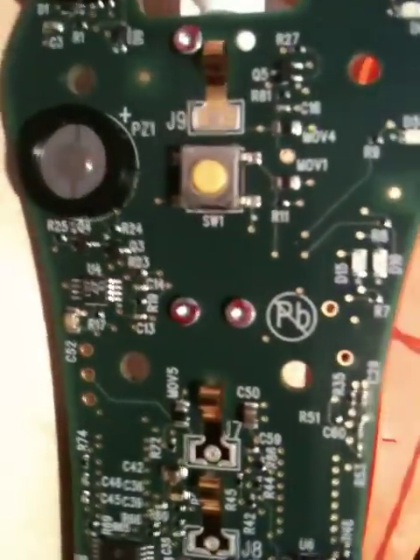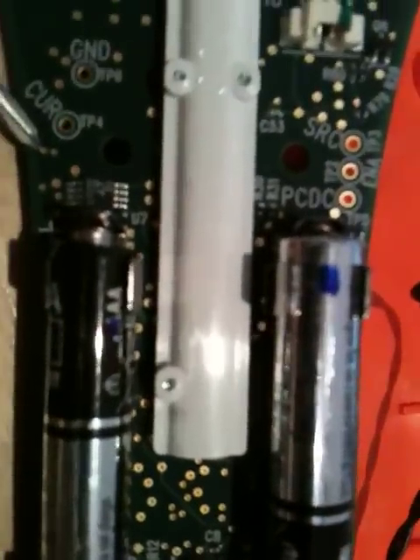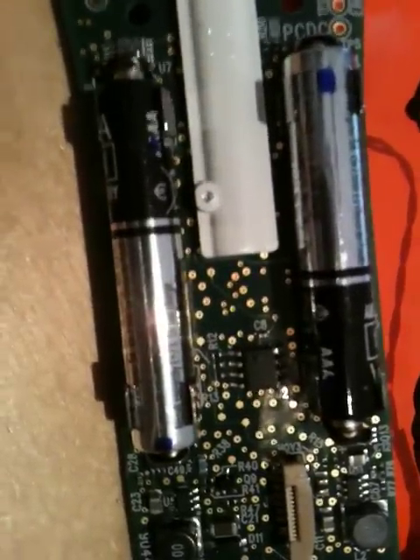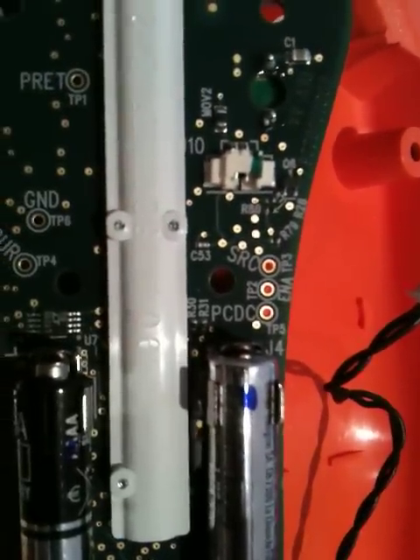This avoids the need to stick a needle somewhere else in the patient to act as a ground electrode. Going back to the PCB, there are far fewer traces than are needed for the circuit on the surface. If you hold it up to the light, the circuit board is completely opaque. There are power planes in it, so it's at least a four-layer board — but actually it must be at least six layers, because the power planes are absolutely seamless. The only way you can route all these traces is on a six or possibly eight-layer board.